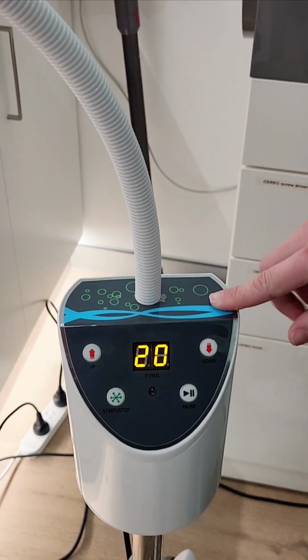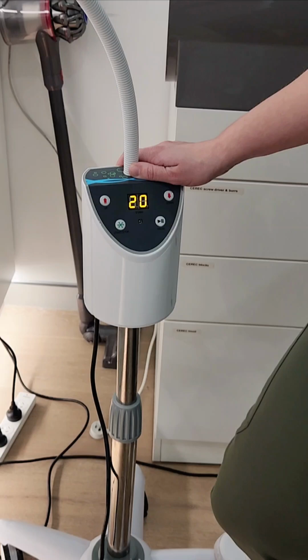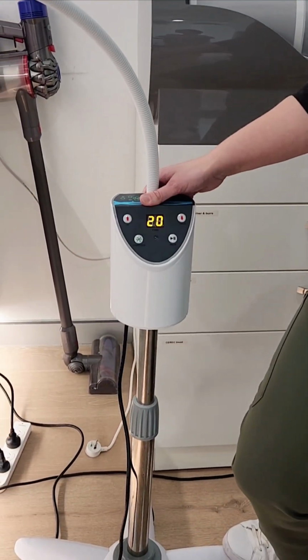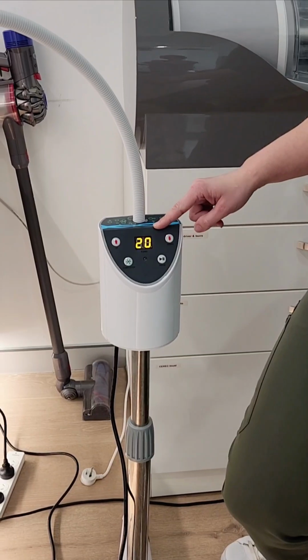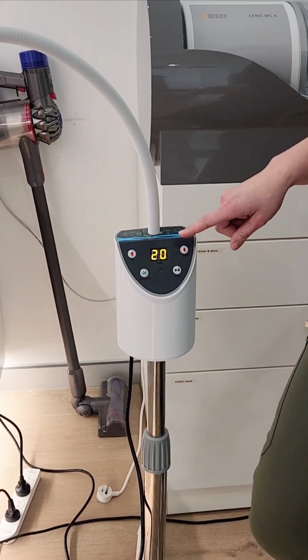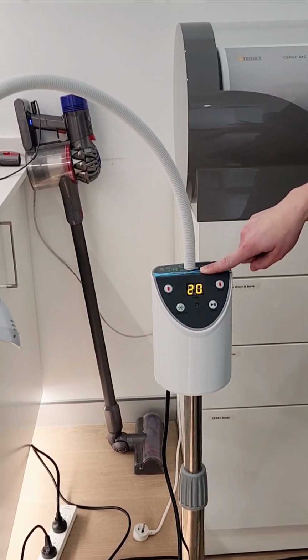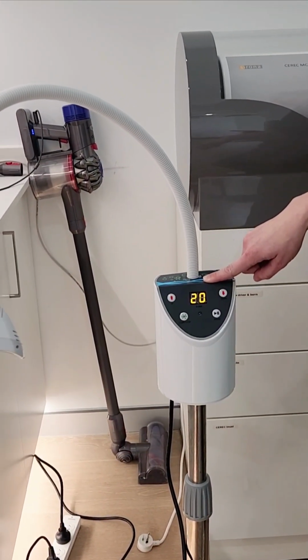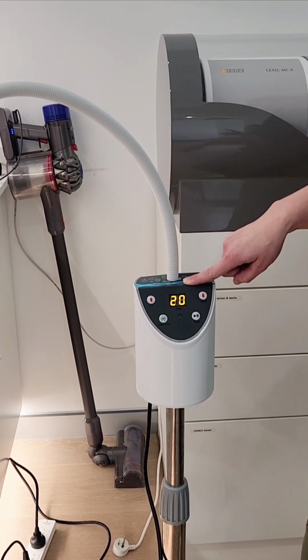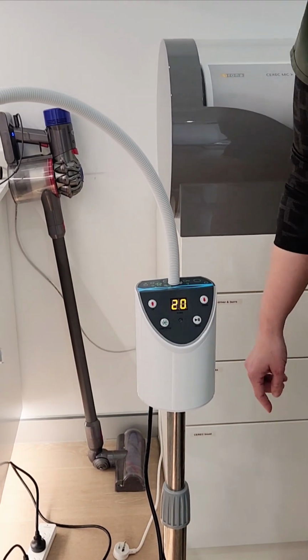This will also beep 1 minute before. This number 20 means 20 minutes, and it'll count down from 20. So I usually do 3 sessions of 20 minutes. When it gets down to 1 minute, it'll beep. I think it beeps once when it gets to 1 minute, and then when it's 0, it beeps 4 times, I think. But if you hear it beep, then it's probably going to stop soon. Okay.